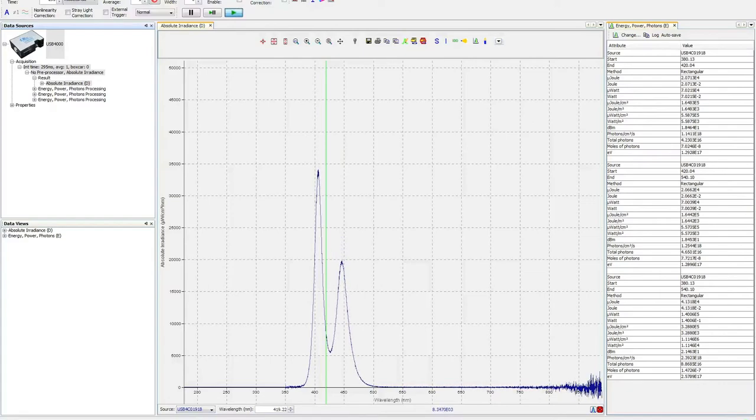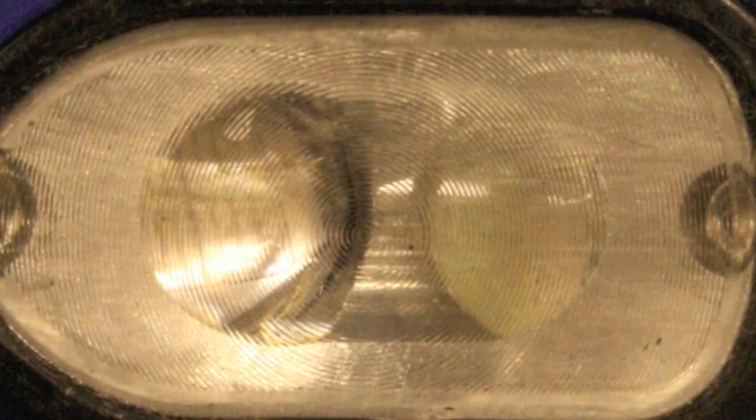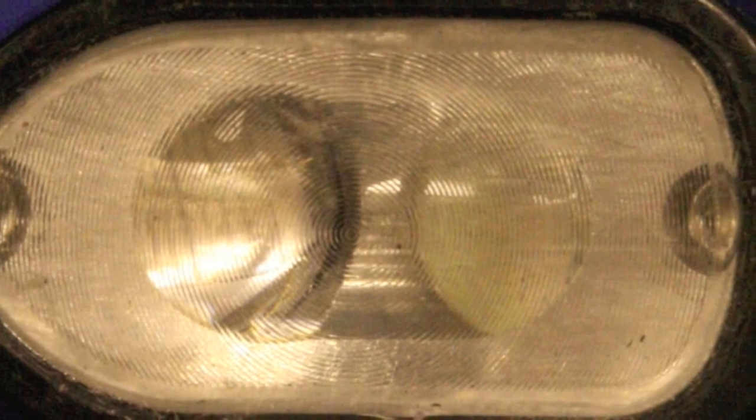Really, the light becomes a different curing light. These results can all be explained by the location of the two different LED chips within the head of this curing light.